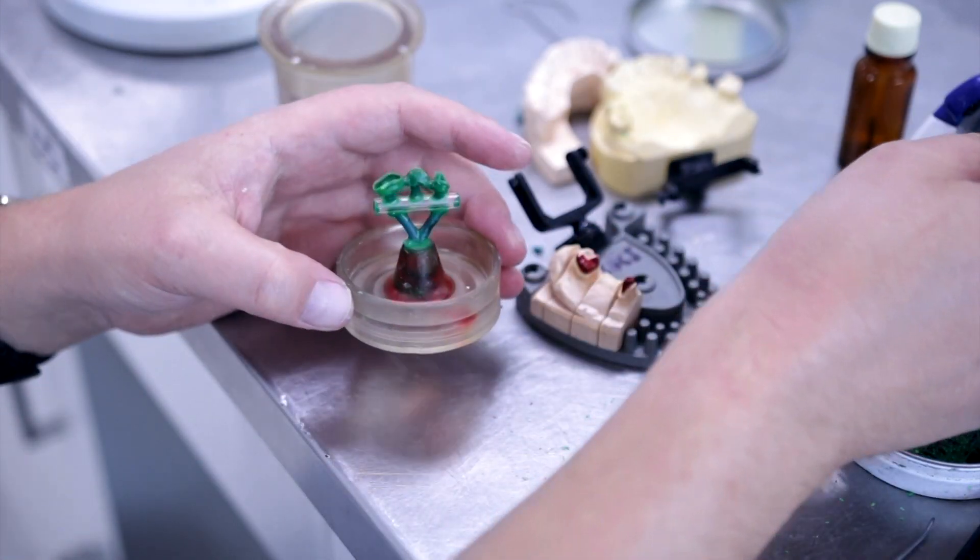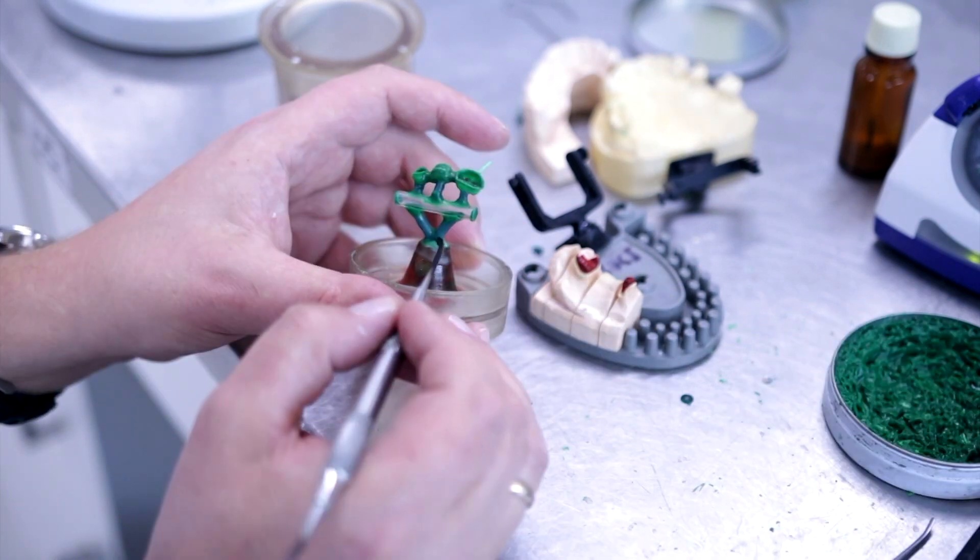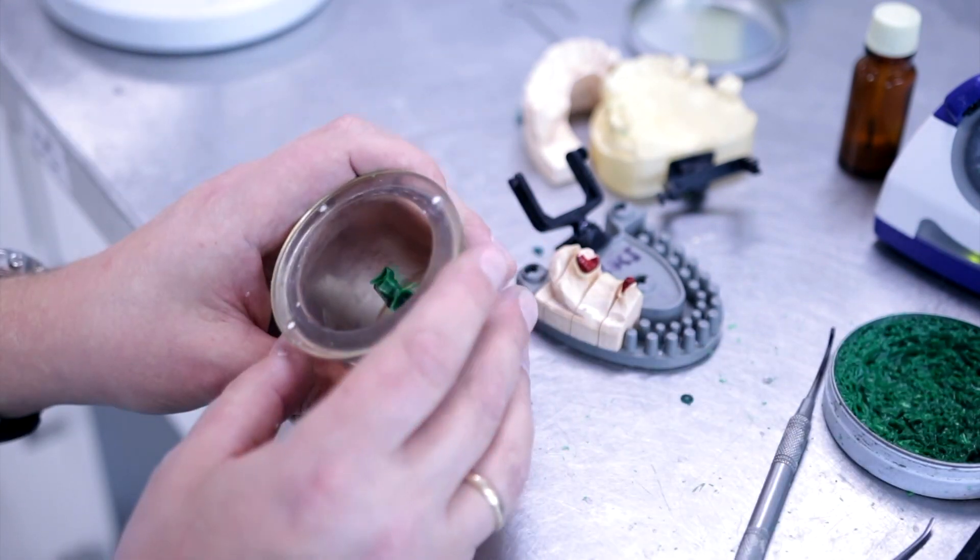It is optional to place a tag on your metal collar, which makes it easier to handle the metal later in processing.